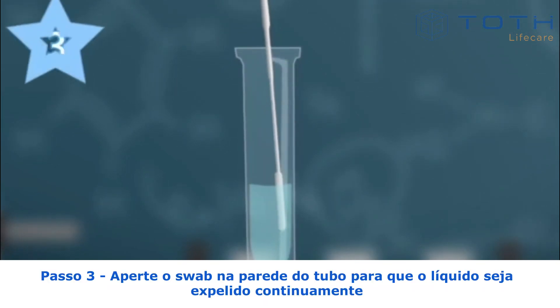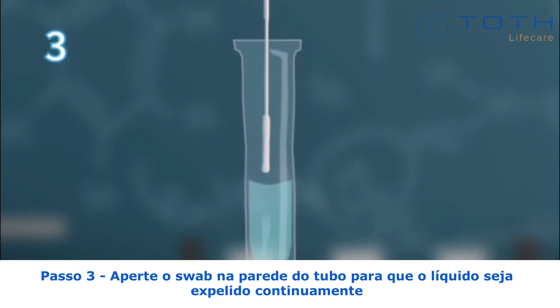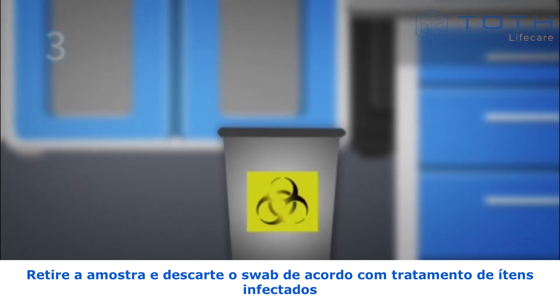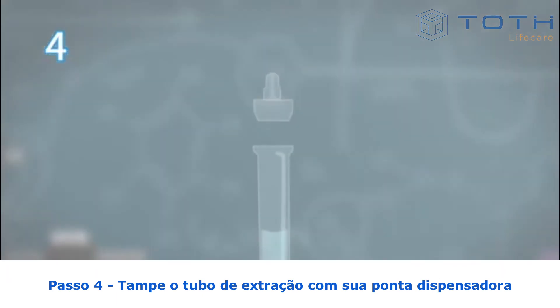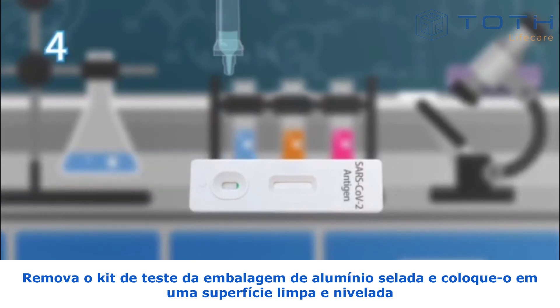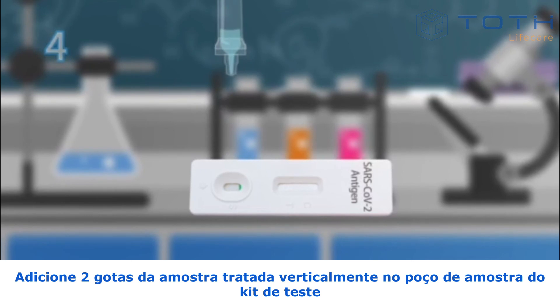Step 3: Squeeze the swab on the tube wall so that the liquid is extruded continuously. Take out the sample and discard the swab according to the treatment of infected items. Step 4: Cover the extraction tube with its dispensing tip. Remove the test kit from the sealed foil pouch. Add two drops of the treated sample vertically into the sample well of the test kit.